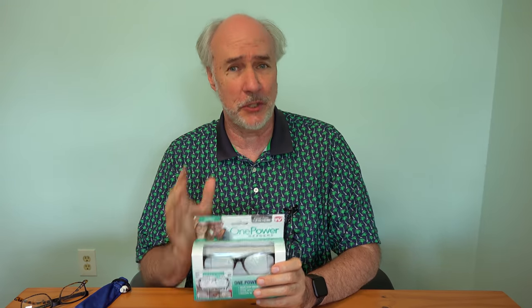I've needed reading glasses for the better part of 10 years, so I have quite a bit of experience with them. Sadly, I just got my first pair of prescription glasses, but that's good because it used to be when I would review these glasses, my comparison was between my fuzzy vision and using the glasses. Now I've got really good, perfect for my eye quality glasses, as well as another pair of adjustable glasses.